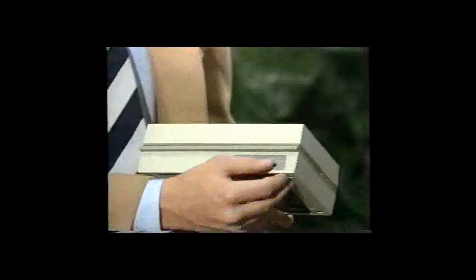The first step in operating the S381 system is using the 383 sensitometer to expose the X-ray film or cine film. To operate the 383, simply turn on the on/off switch, select the correct exposure for your film type — blue or green sensitive — and insert the film wedge, making sure it comes to the edge of the stop and is centered underneath the exposing platen. Then press and wait for the tone. If the tone doesn't sound, the batteries are too low to produce an accurate exposure and will need to be changed.